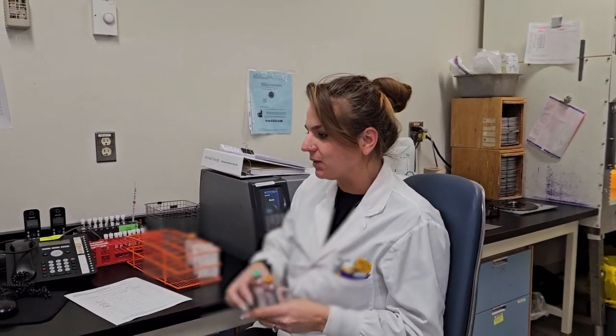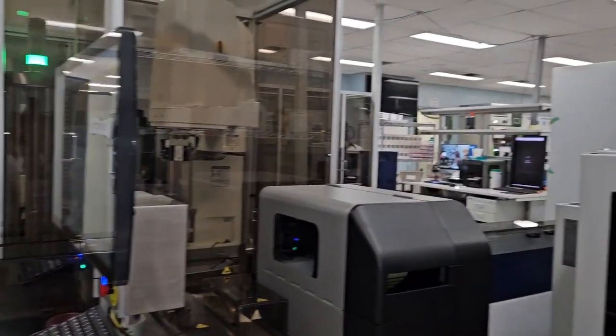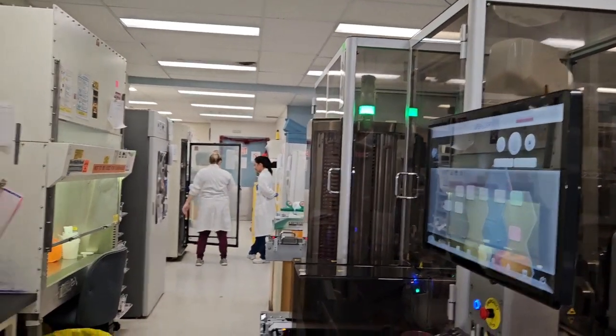We then start a manual process where we run it on our WASP machine, our walkaway specimen processing. We have 3 samples running now. It'll set up our plates and our gram stain. We then, as techs, will stain our gram stain, read it, and release the result to the ward. The plates are then incubated for about a day and then worked up.